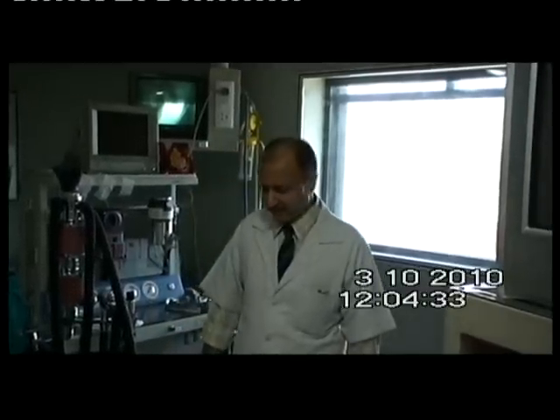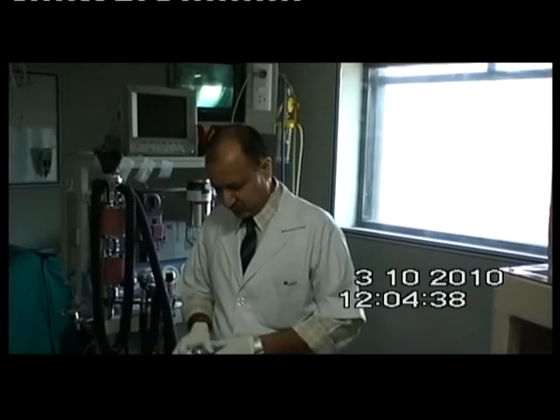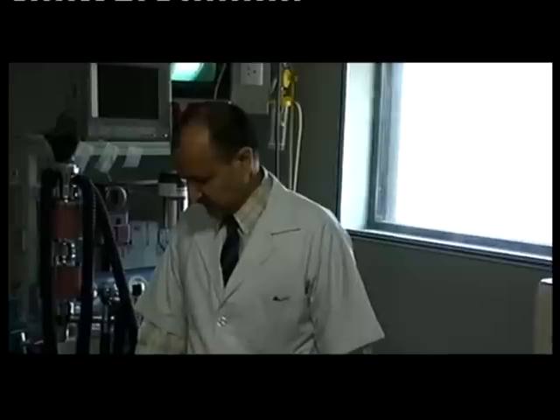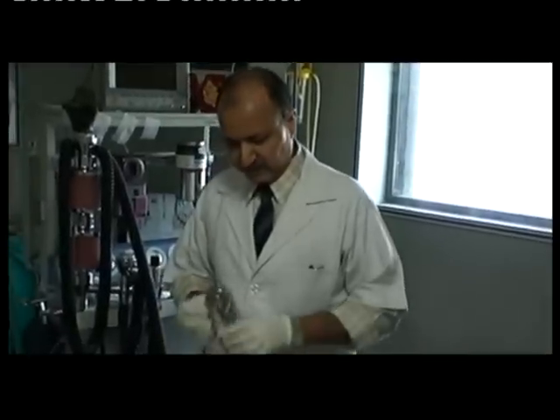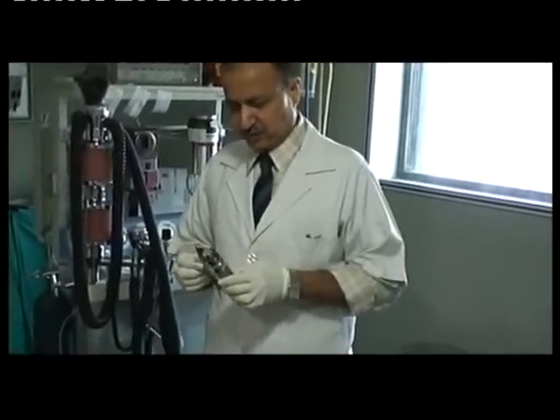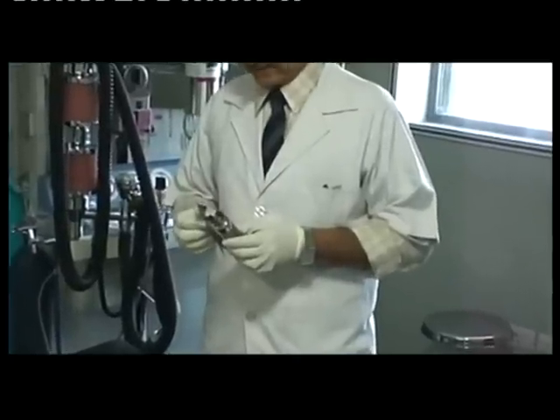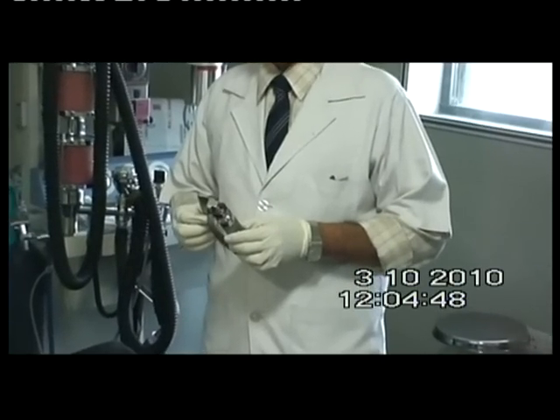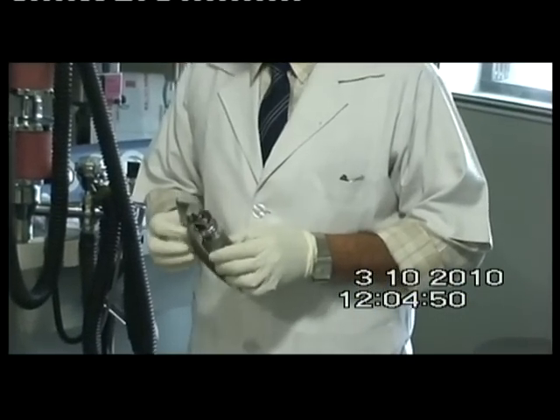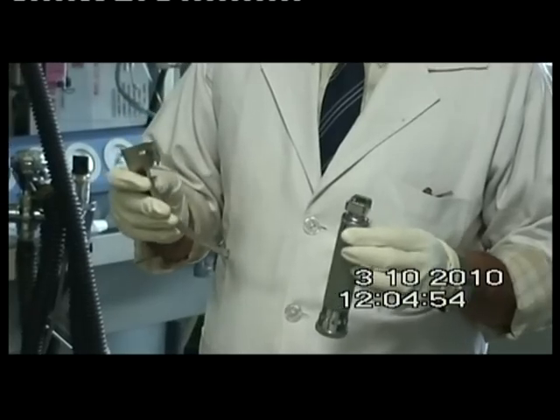Welcome to the world of anesthesia. Today I am going to tell you about the rigid laryngoscope. This is a rigid laryngoscope which is used to observe the larynx and mainly it is used for endotracheal intubation. It consists of a handle and a blade.